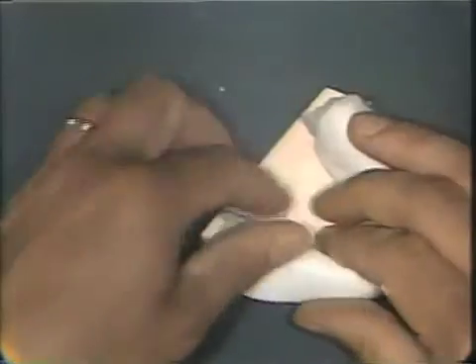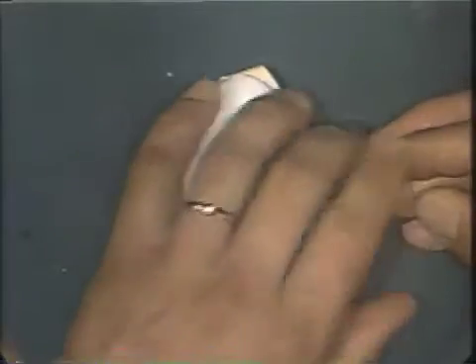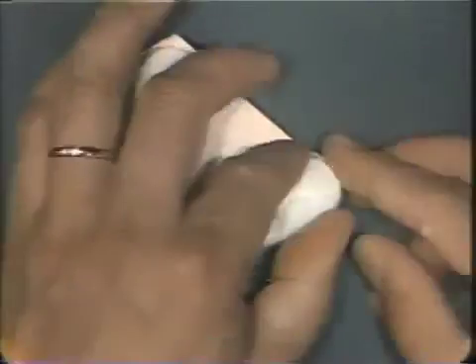The rolled former tray is placed on the cast. It is molded with the fingers so that it comes down to the penciled periphery lines on the cast. The edentulous area is molded in with the finger.